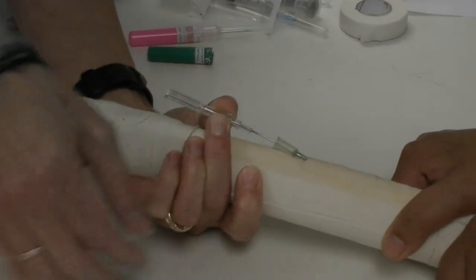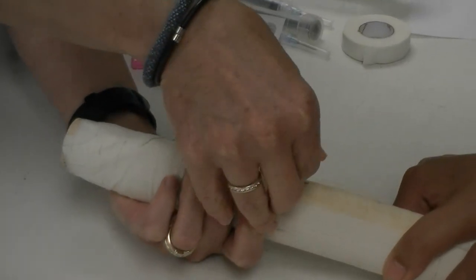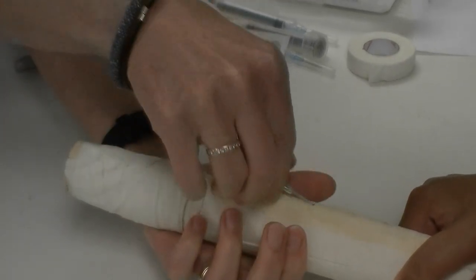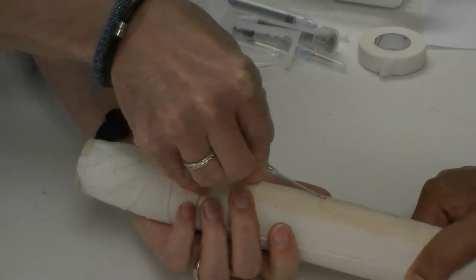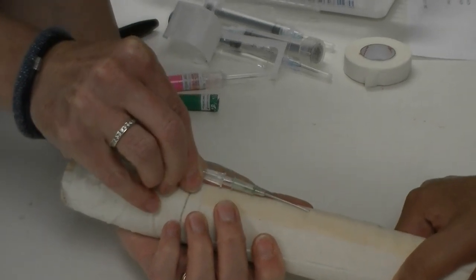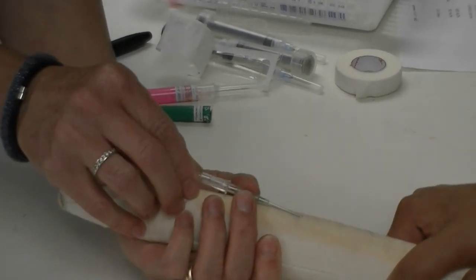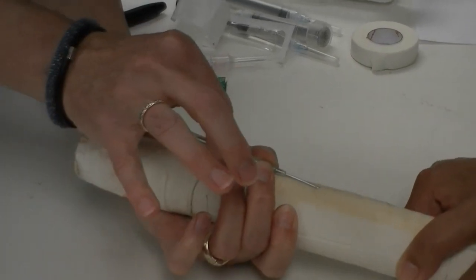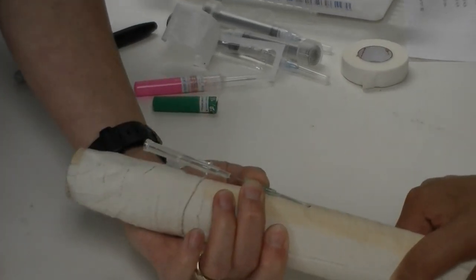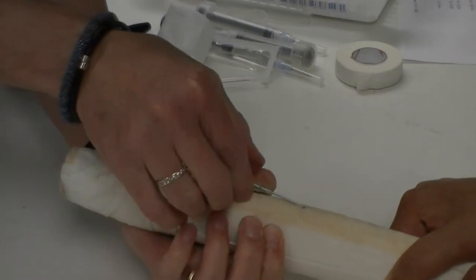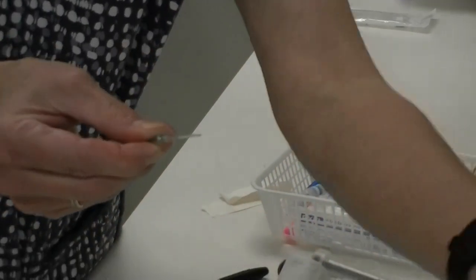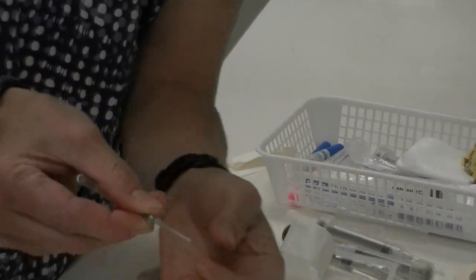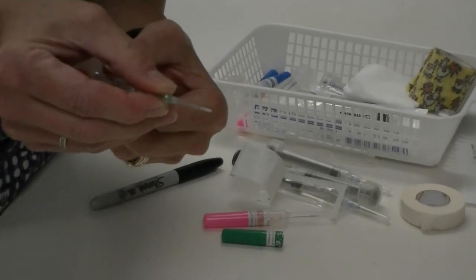What we don't want to be doing—I'll back this out a little bit—is once you have your vein in place, what you don't want to get into the habit of ever doing is removing the stylet and then attempting to advance your catheter. Your catheter is flimsy, it has very little stability. As you pull your stylet back, this will be flimsy and there'll be no straightness to that end, and you won't be able to feed it into the vein.